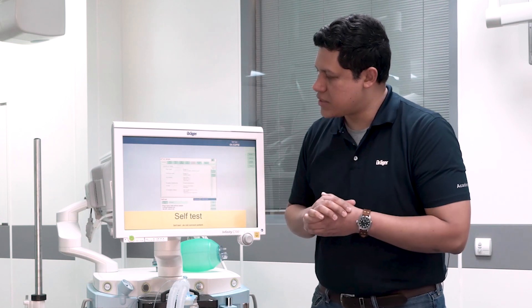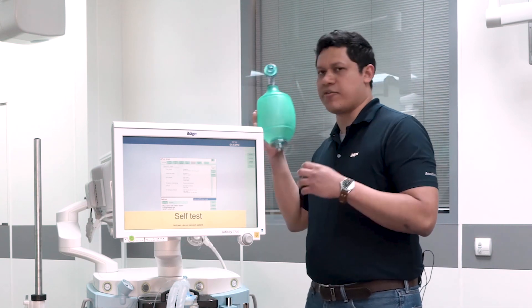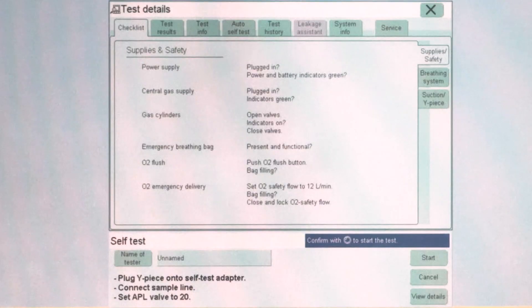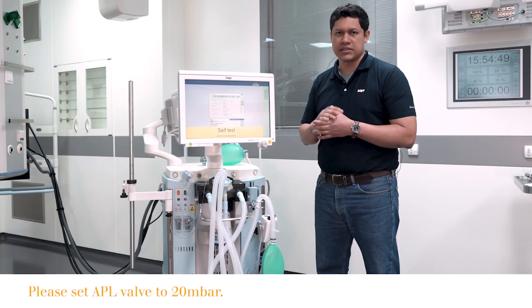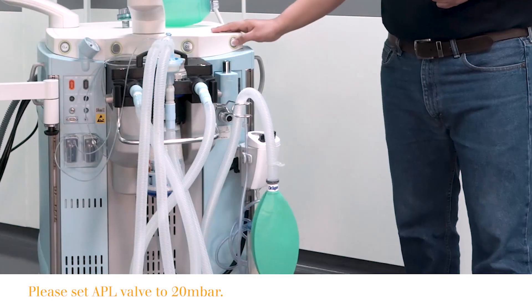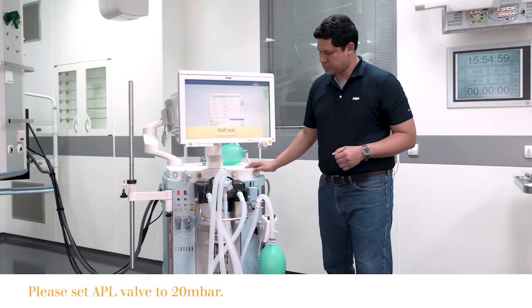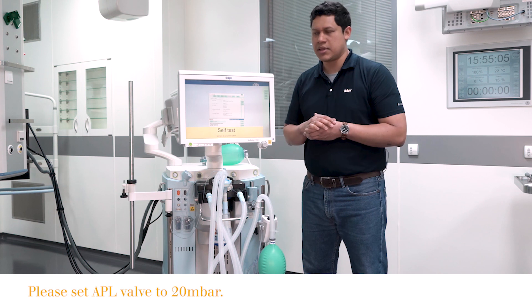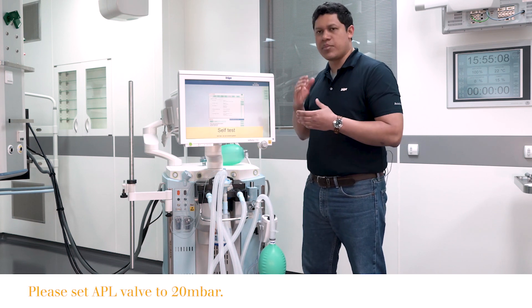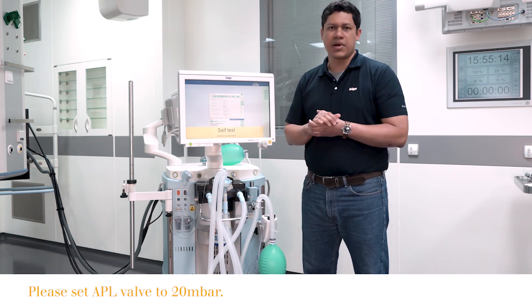The next component is the emergency breathing bag. Always make sure that an external emergency resuscitator is available. The next component to verify is the oxygen flush. We have to press it and make sure that this flow is going into the manual breathing bag. The next component to verify is the oxygen emergency safety valve. We have to press the component and set it to the maximum flow of oxygen and verify that the manual breathing bag gets filled again.